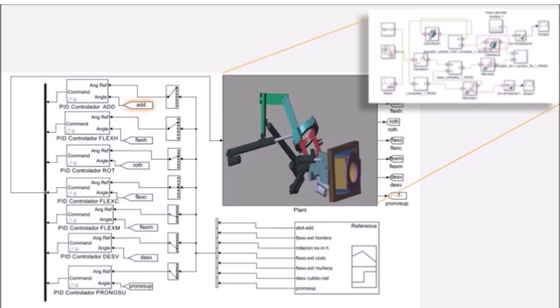The simulation consisted in introducing in each articulation of the exoskeleton the corresponding trajectory to be able to emulate a semi-circle.